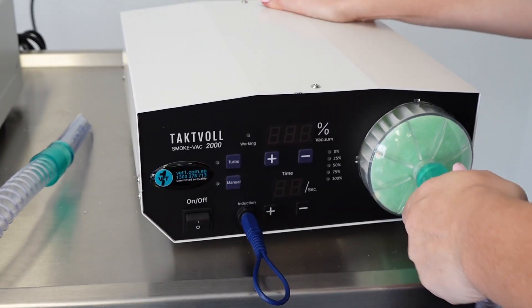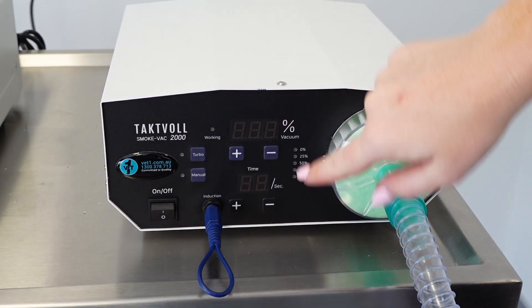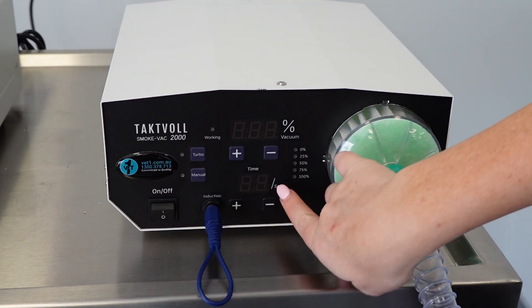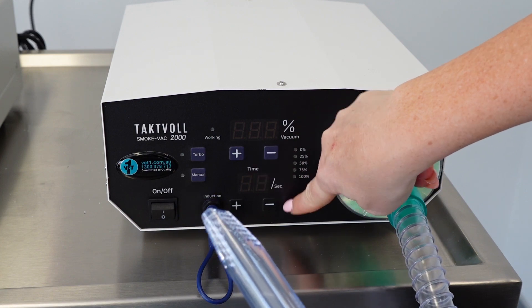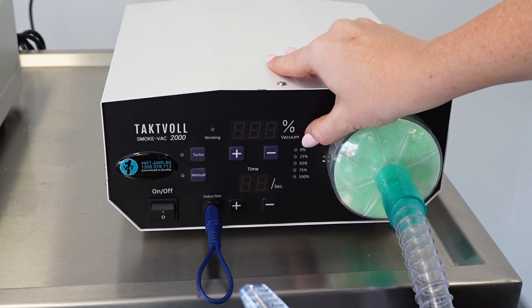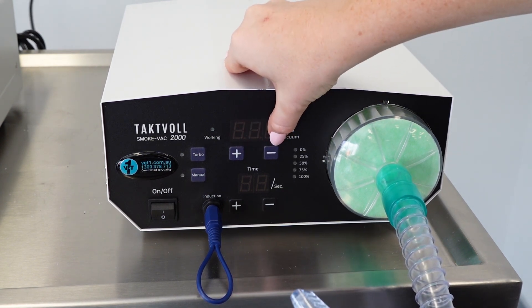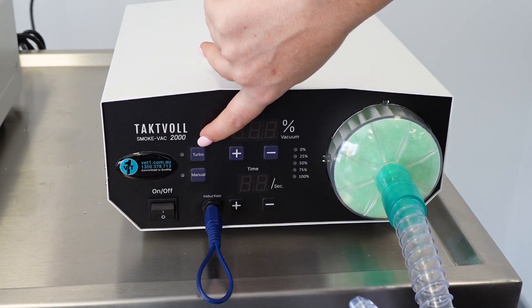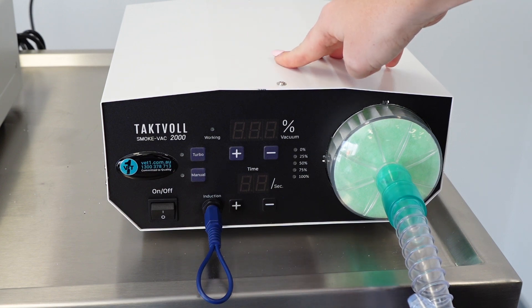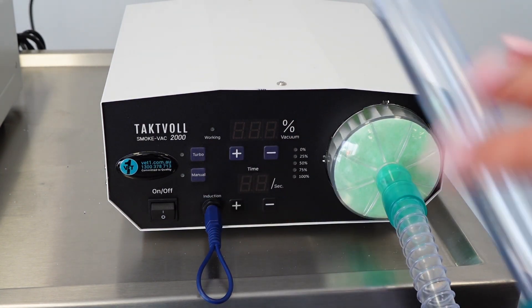The filter does need to be replaced periodically — there's a percentage dial on the front of the smoke evacuation system. When it's at 100% the filter is fine; once it gets down to 0% the filter needs changing. You've got a couple of settings: basic on and off, and a time setting, which determines how long the machine will automatically suction and evacuate smoke after you stop. You've also got a percentage power setting — your volume — which goes up to 100%, and you can adjust that to suit your patient and environment.